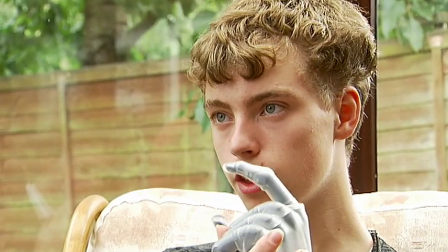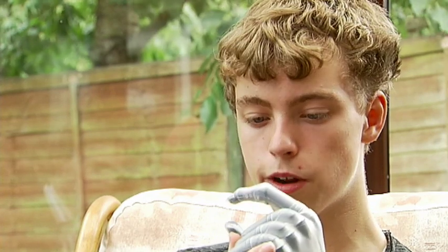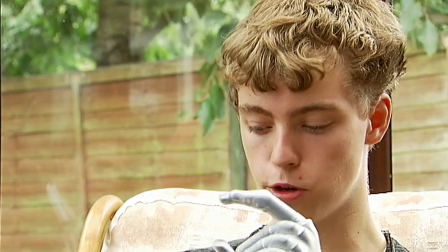So what are you doing? Are you thinking 'close the fingers together', or how are you making it work? Well, when I first got the hand, I was thinking to push my wrist up to activate this muscle to open all the fingers or do the equivalent. So trying to work it as you would work your right hand? Yes, but after a time you kind of get a lot more natural. Now I don't need to think about moving my left hand inside here. I just need to think about moving this hand. The middle step is gone.